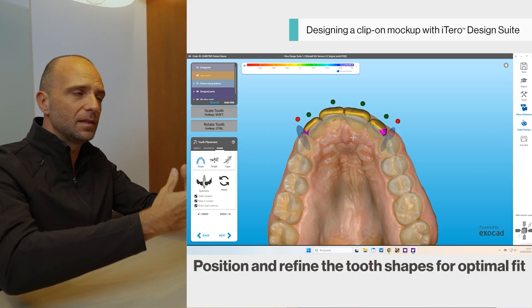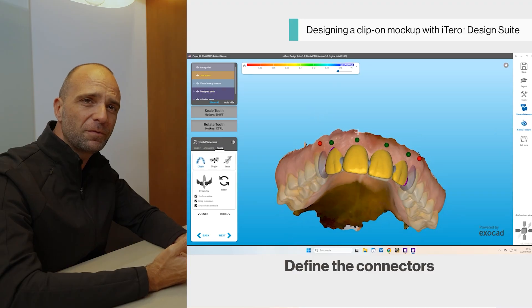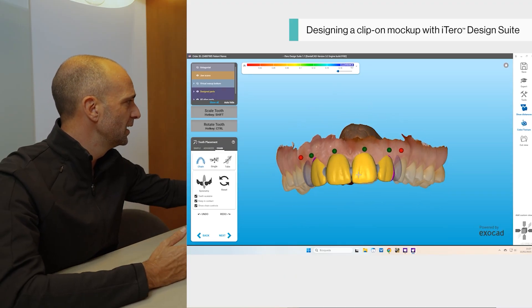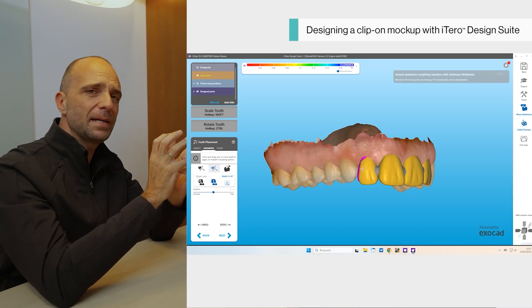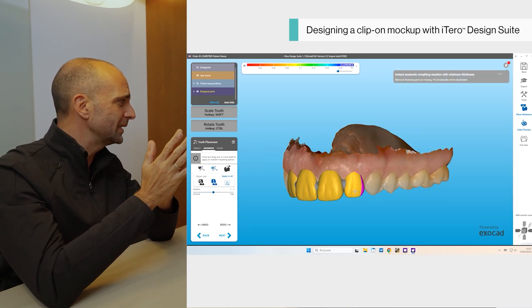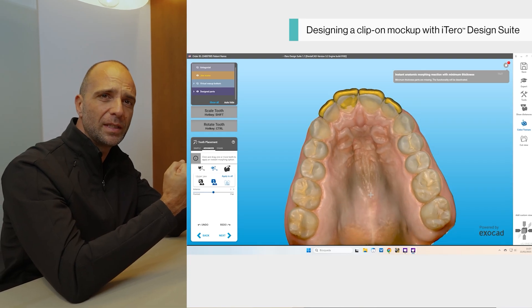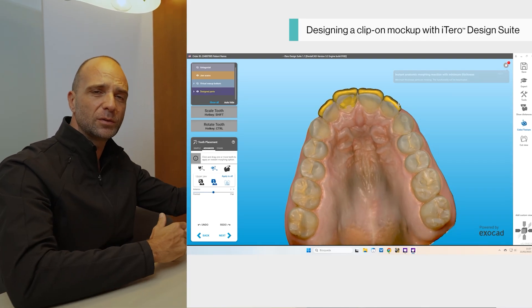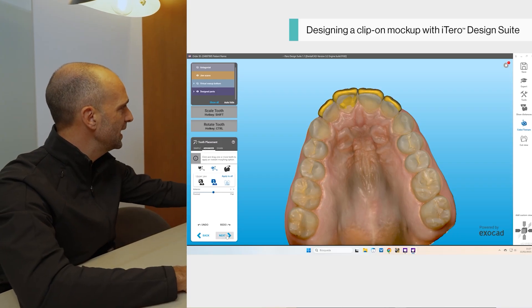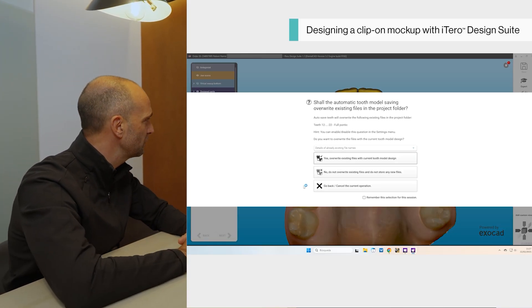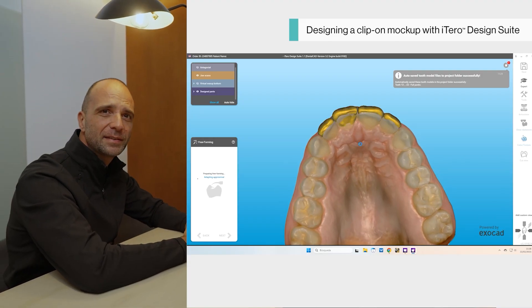We all know this type of mock-up is an additive technique, so it will be overlapping the actual situation of our patients. Very important, especially in terms of printing and post-manufacturing — if the connectors are too thin, they will likely break after the manufacturing process. This type of clip-on design really depends on the type of bite, insertion, and characteristics of the patient. You will need to be fine-tuning and selecting which type of mock-up is appropriate — either this clip-on or the classic model option.